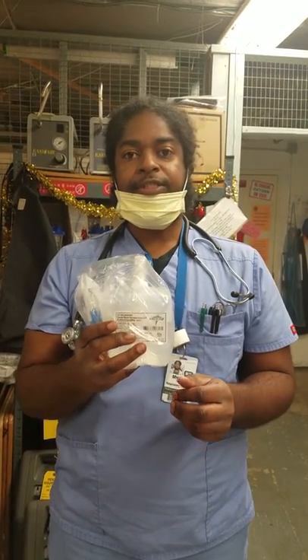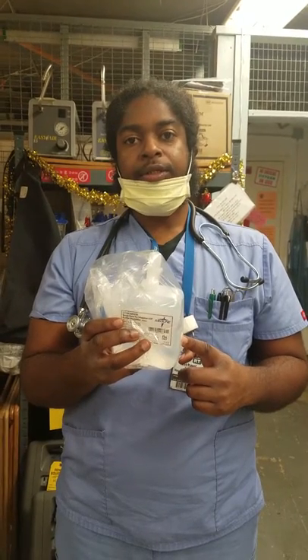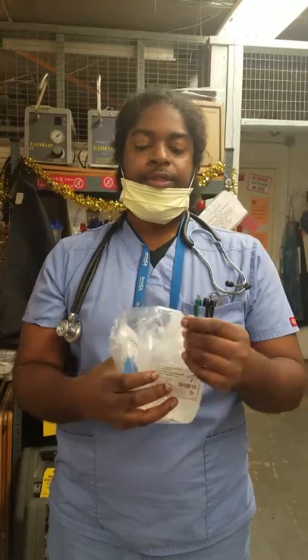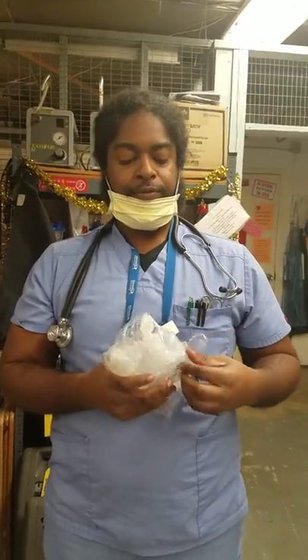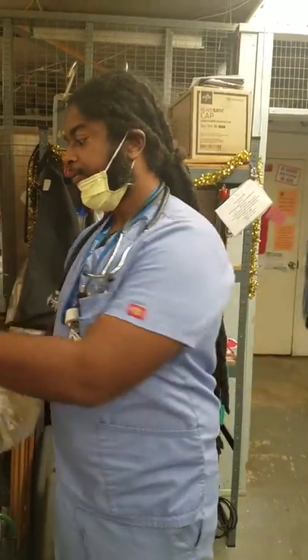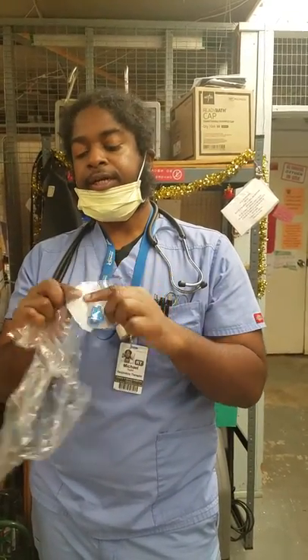These are the oxygen humidifier systems. These will get twisted on directly onto the concentrators. These will replace the bubbler humidifiers that have the plastic part that screws off the bottom of the lid. You're going to remove this disposable humidifier — and there's also a top on the inside.